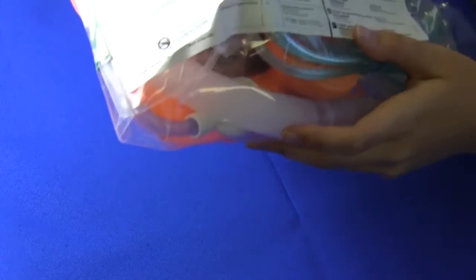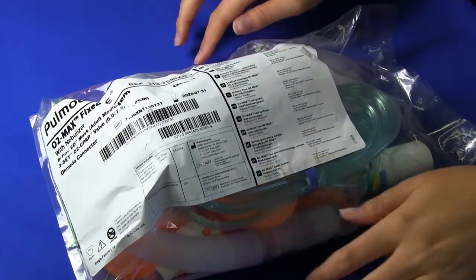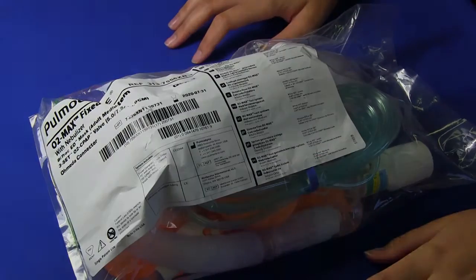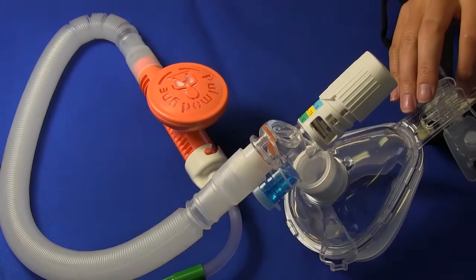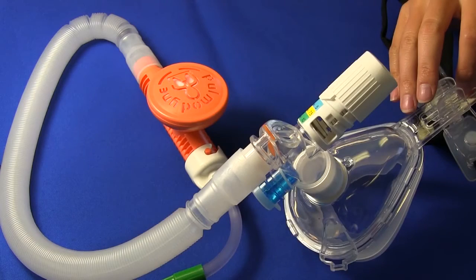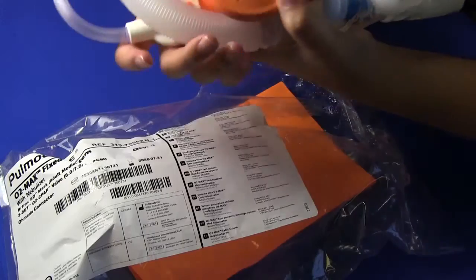Today we will be training you on how to use the O2MAX system with the nebulizer canister. To begin, we'll list the basic parts of the O2MAX system. The O2MAX system includes the following.